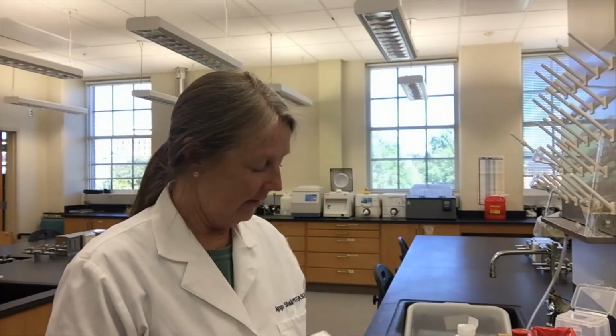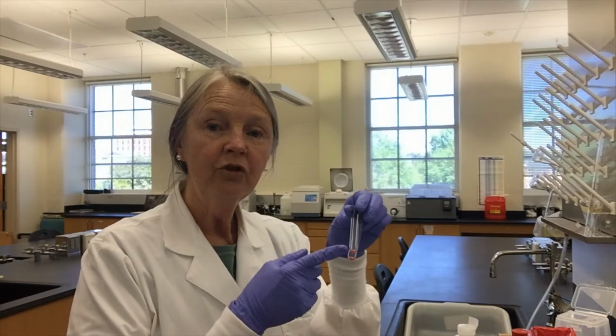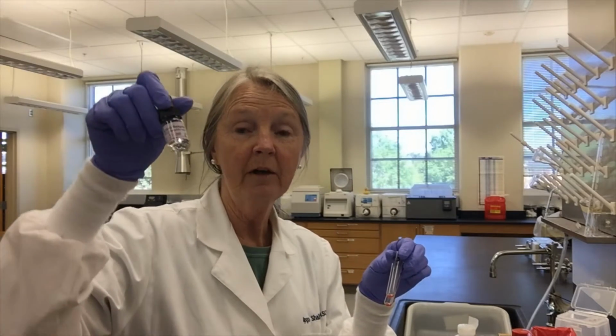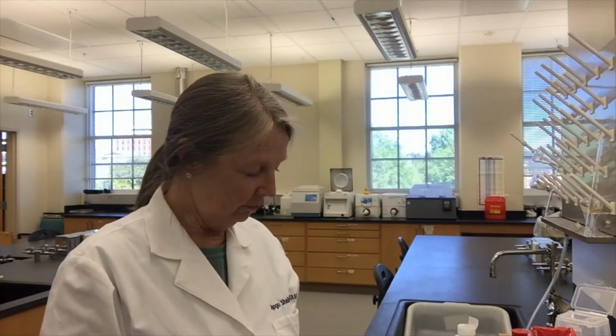So now we have our mother's D negative cells, right? And we have added some anti-D, antibody to big D, so that if there are any baby or positive cells in here, that anti-D should attach to those red cells. Okay, now we've given it time to react. Now we've washed it, and you know why we wash, to get rid of any unbound antibody, any antibody that's left over that's not bound to those baby positive cells from this anti-D. We want to get rid of that, okay? So that's why we've washed the cells.